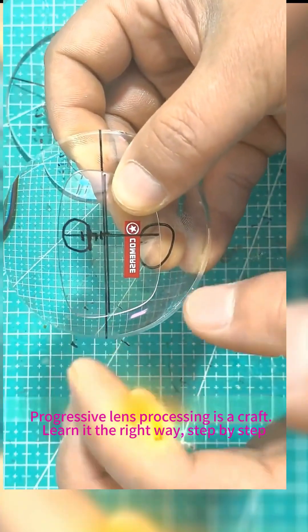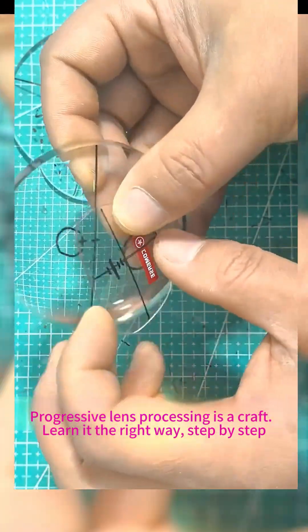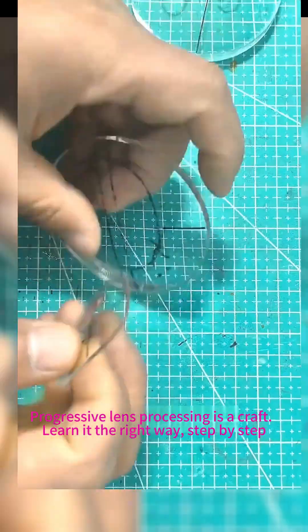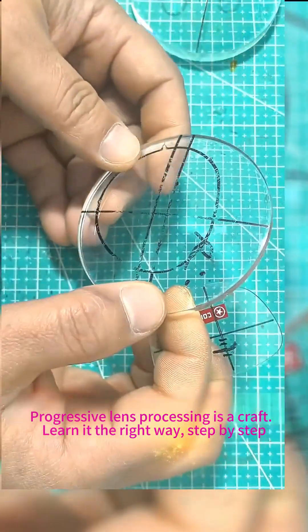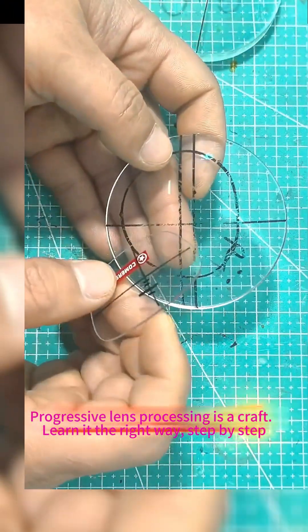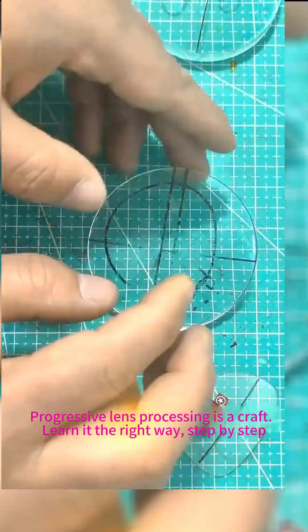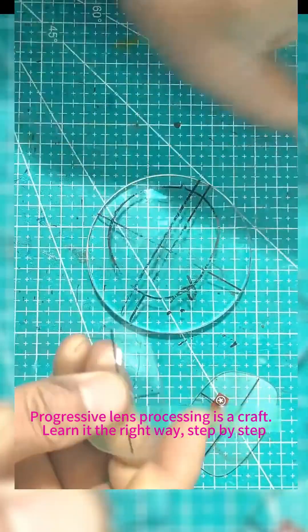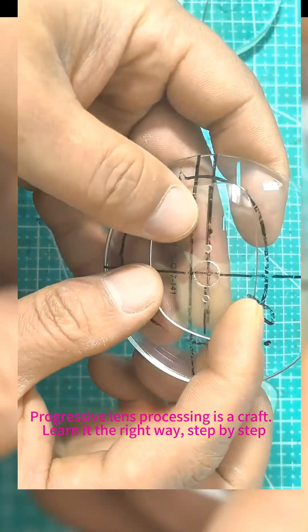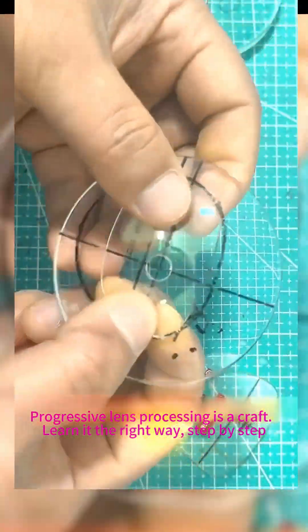This requires experienced calibration. Beyond textbook knowledge, which is just reference, for high-index and PC lenses that often shift during processing, trim excess edges strategically. Align the copper template with the optical center first, then remove surplus material for precise results.